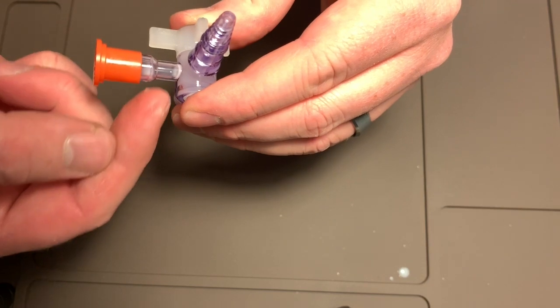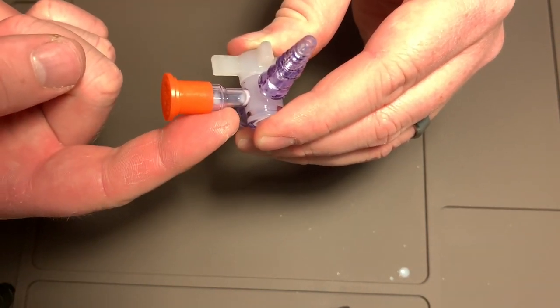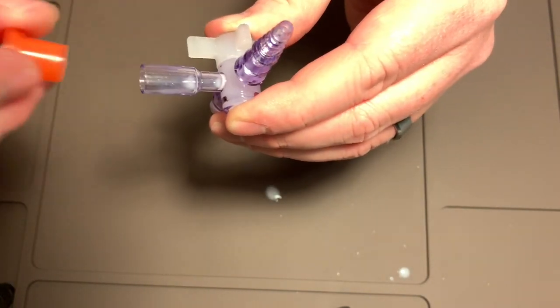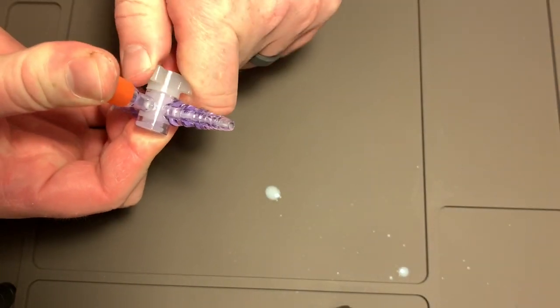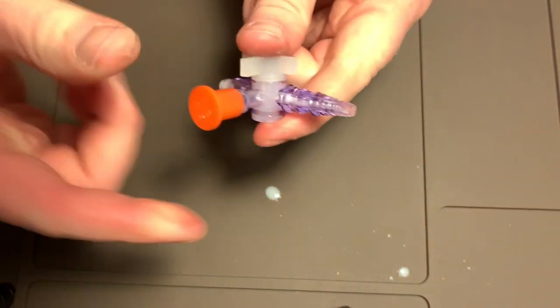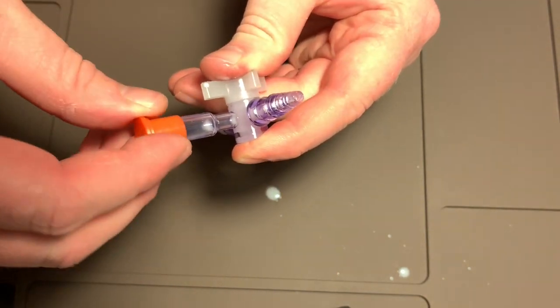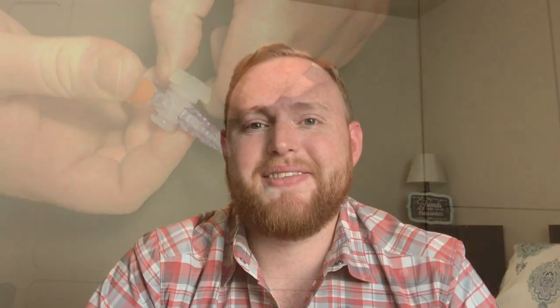And lastly, anyone who has used these a good bit knows that whenever you've got stuff in here, then you go to pull this cap off, it usually ends up shooting at you. So now you've also reduced the amount that's in there. Now you've reduced the amount of stuff that's in here, so whenever you remove the cap, less is going to shoot back at you. So that's just my third tip.